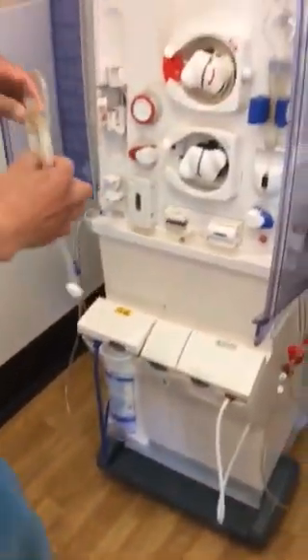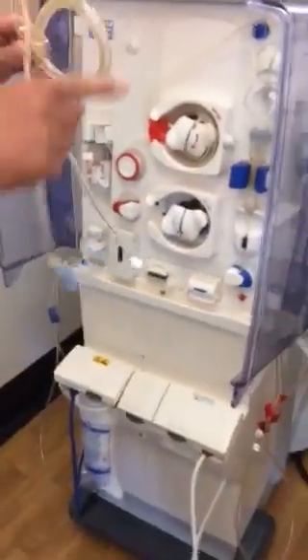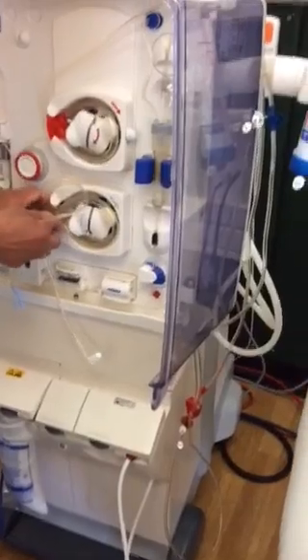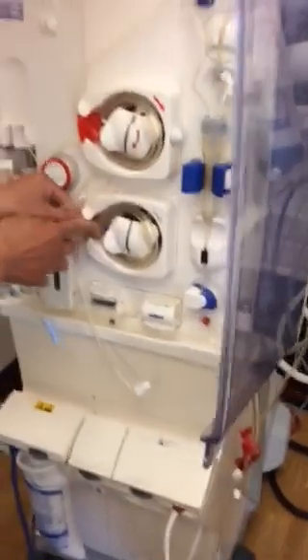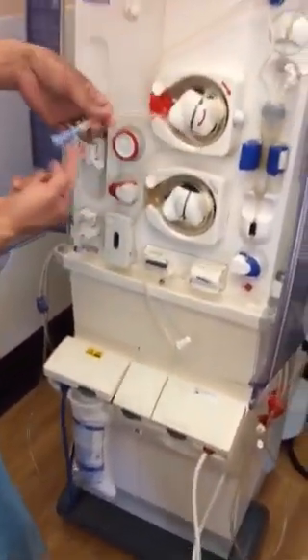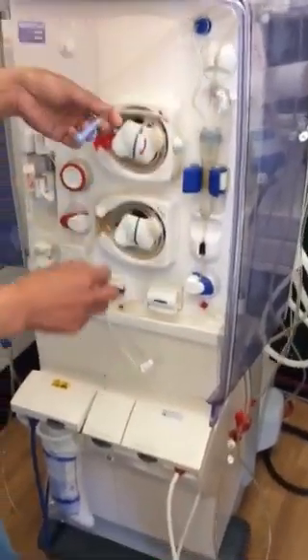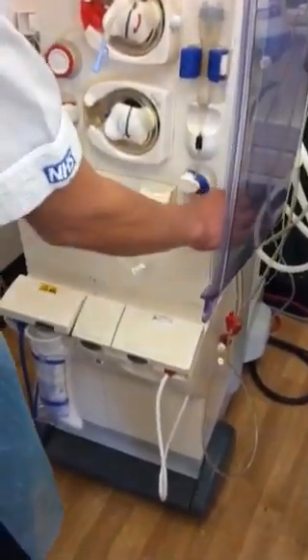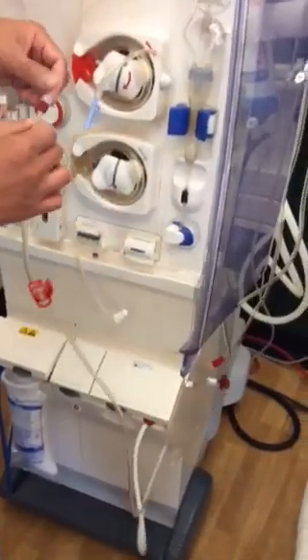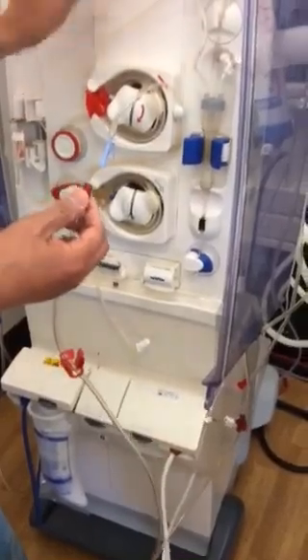You get this one — it's VF9. Same thing with this one. There is a spike, as you said, and then the loop, so you won't get lost. You will hear the beep sound again when you push it. You hear that? Same thing — this one will go here, clip it here. And then this one will go onto this one — the one I hung over there. Take this out, just snap it. You don't have to spill it. And then put it together.